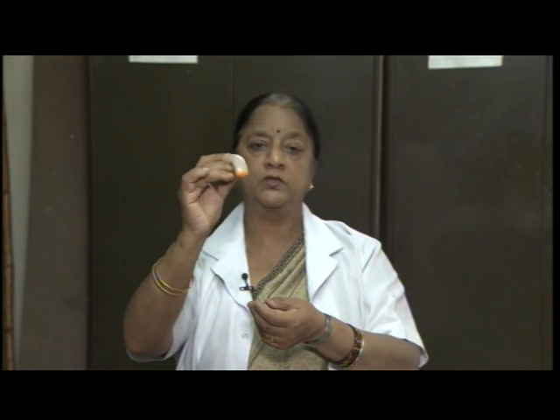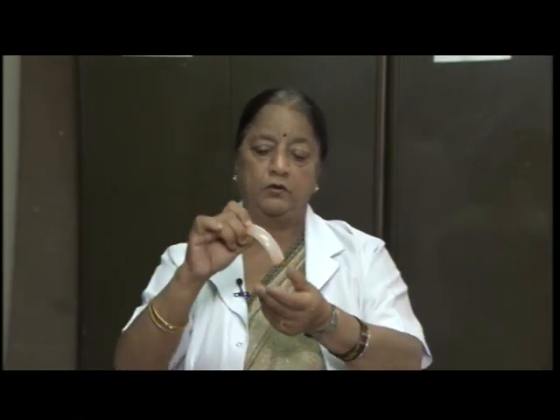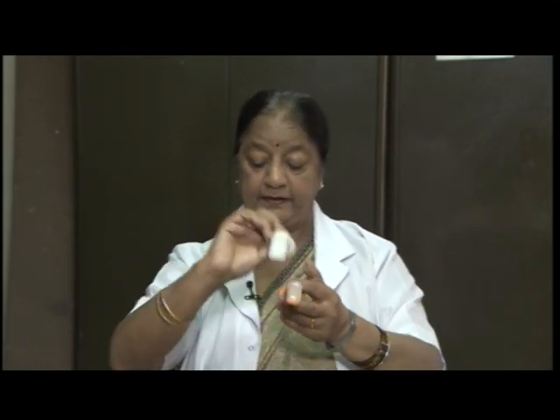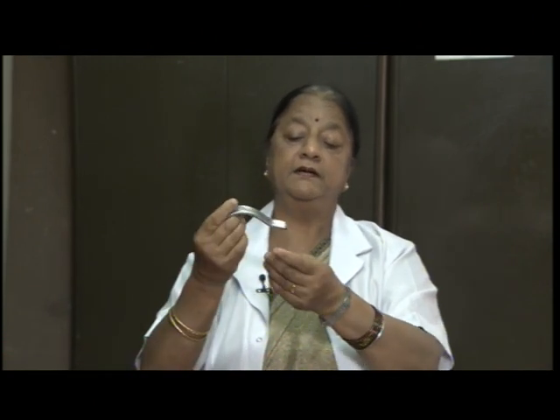Sometimes the patient is unconscious or the tongue may fall back, which blocks the air passage. So, to keep it open, we make use of different kinds of airway. This is one type of airway which goes inside the mouth and it is hollow, and we can even suction from here. This is another type of airway. These are all plastic ones, PVC ones. This is the one with the metal.